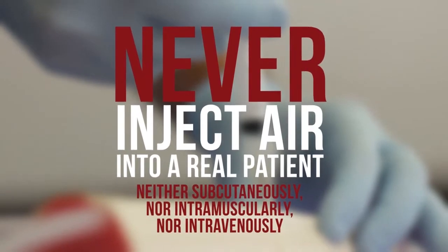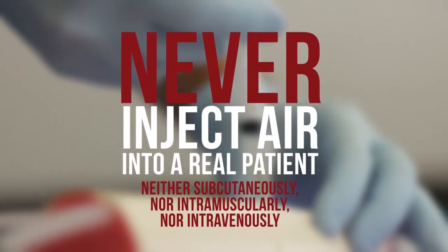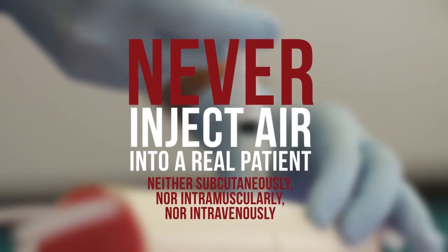Never inject air into a real patient, neither subcutaneously nor intramuscularly nor intravenously.